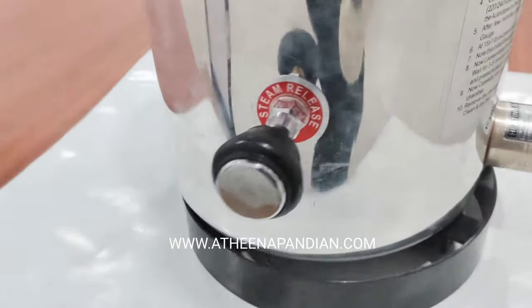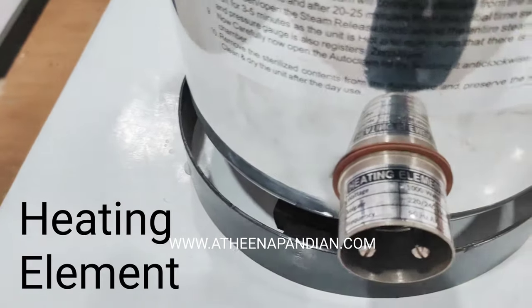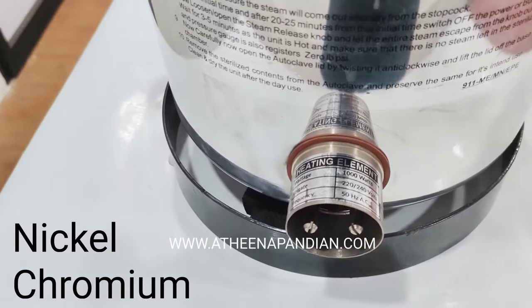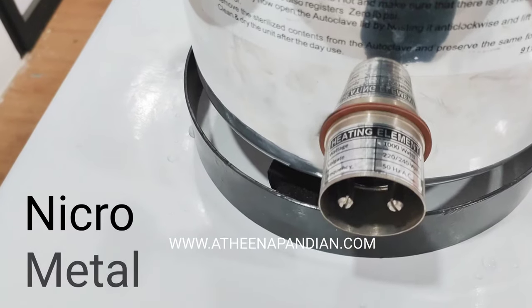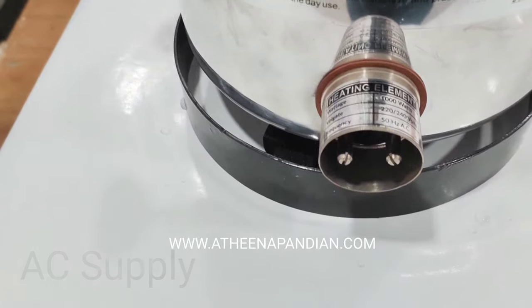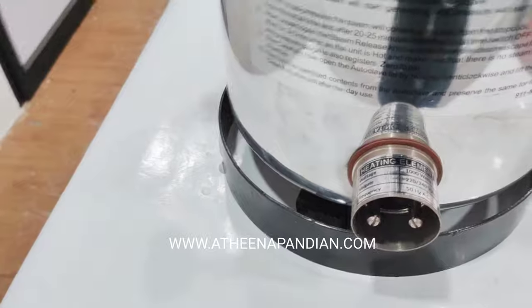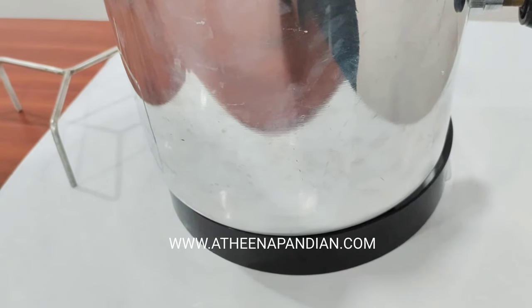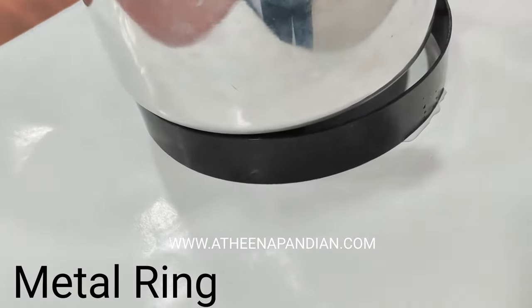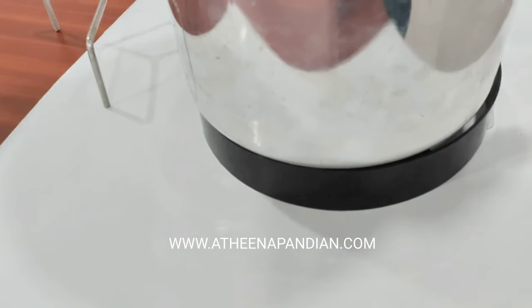At the back side you can see the heating element. Here we are using a heating element called nichrome, which is nickel chromium metal. I am going to connect my power cord for the AC supply and for the heating process. At the base of the autoclave you can see a metal ring.